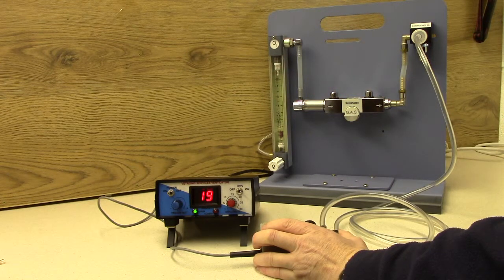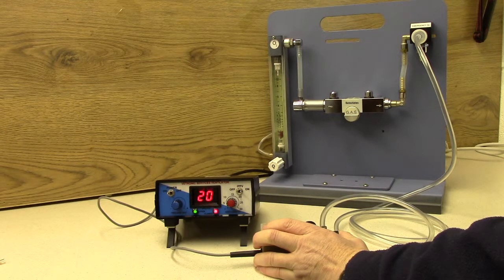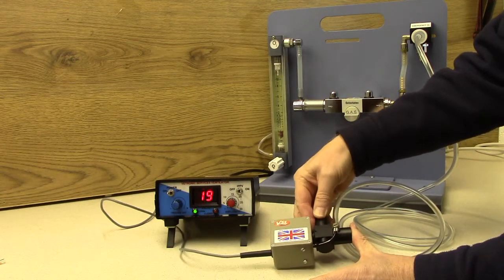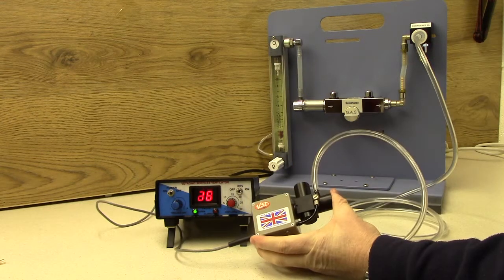It will repeatedly click on and off to release the valve pressure and then allow incoming gas to raise the pressure and trigger the ventilator again. This period will be about 1 second because of the 1 second expiratory length and the flow rate selected.